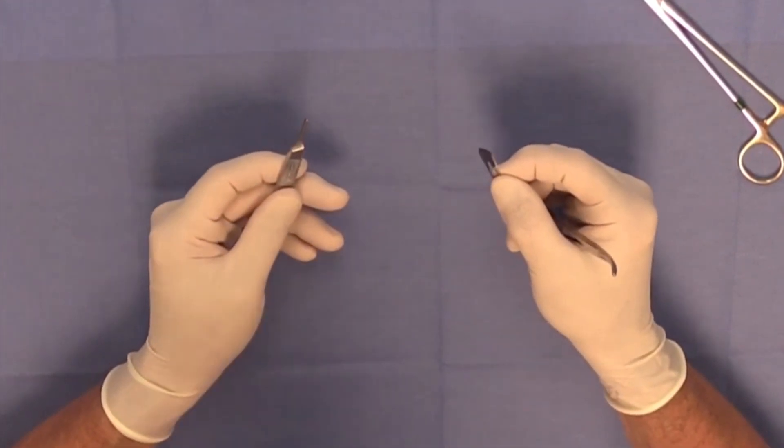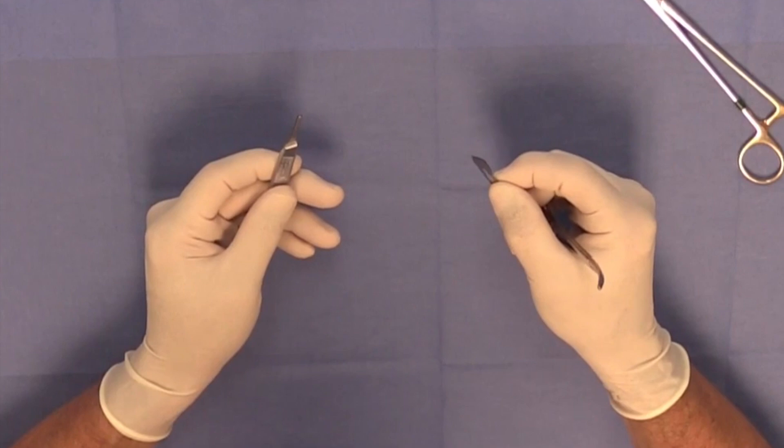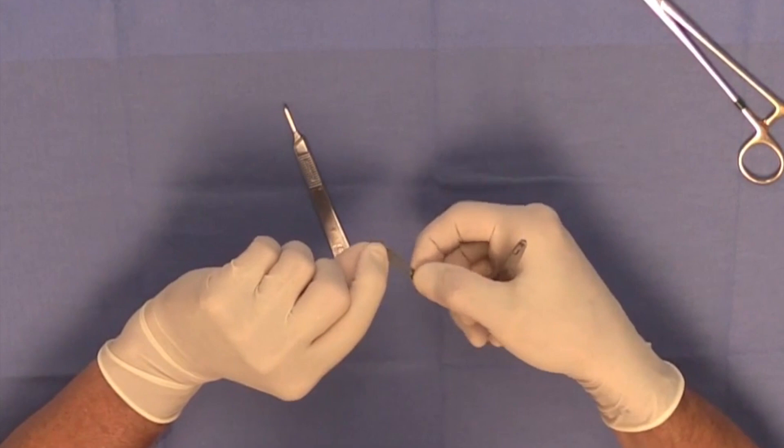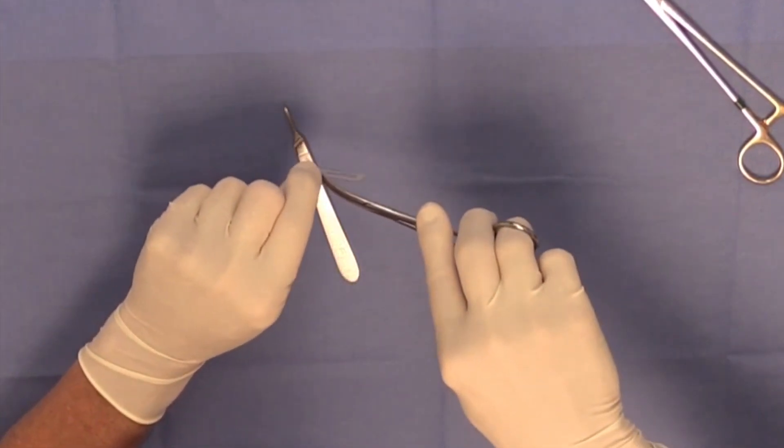Some surgeons probably get in a hurry and can do it safely, but what I would recommend is that you properly apply the scalpel blade by grasping the scalpel blade with an instrument.